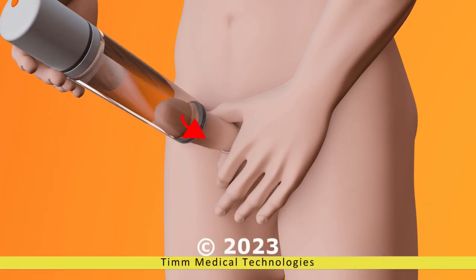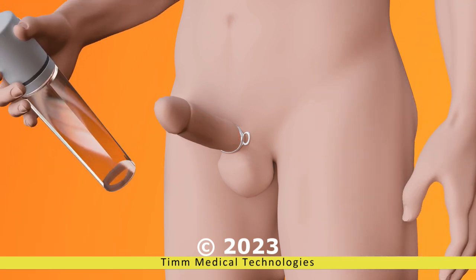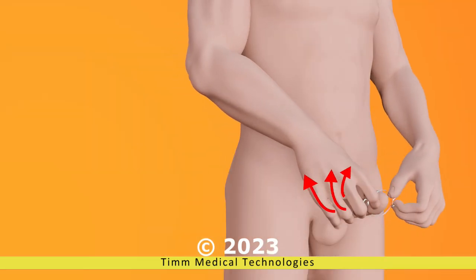Slide the ring off the cylinder and onto the base of the penis. When finished, remove the tension ring.